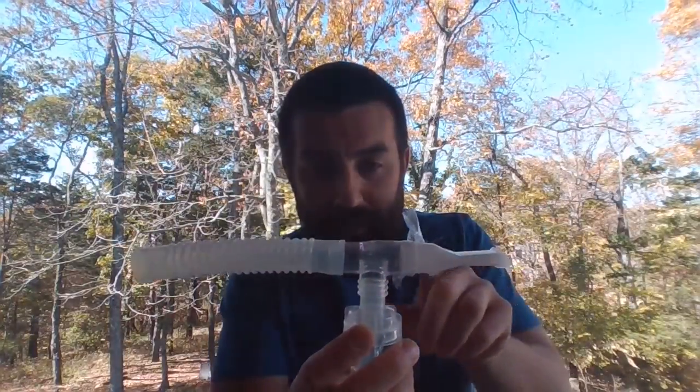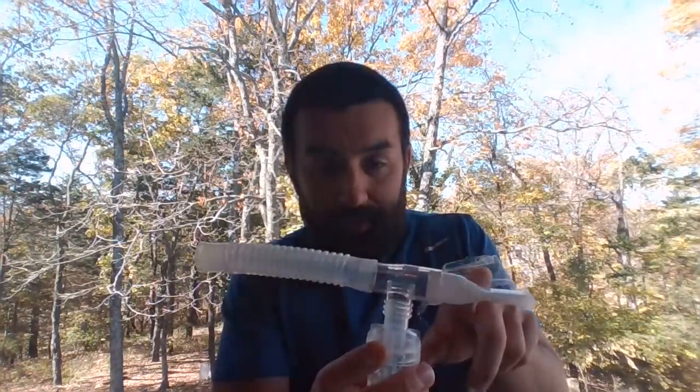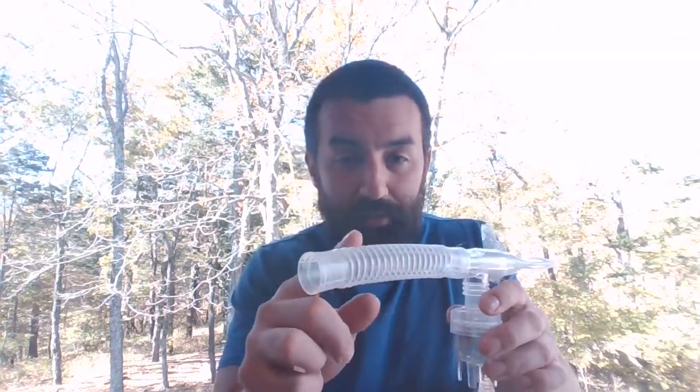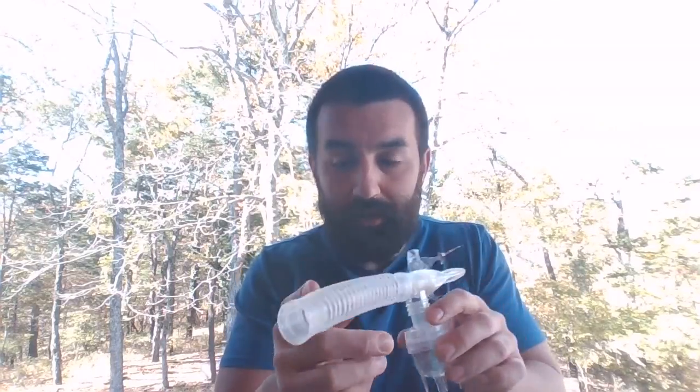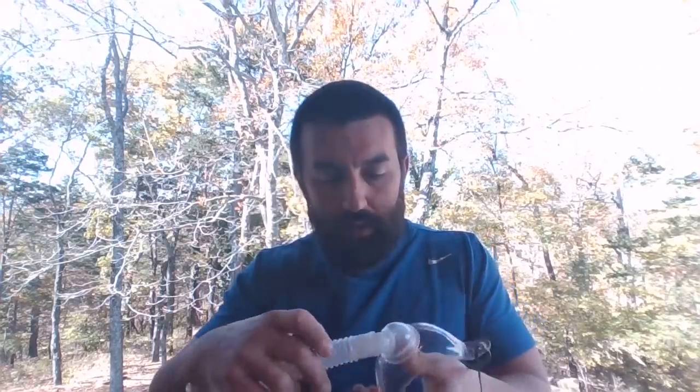So right now, if I run this, aerosol would come out of this. It's not going to be able to come out through the T. It's going to be blocked off on one side, and it's going to follow its path through this reservoir, or this corrugated tubing. I could then have this hooked up for my patient, and I could twist and contort. I could even have them hold it like this, and now I can get that thing completely level, where they can get all of their medication. It looks super hokey.